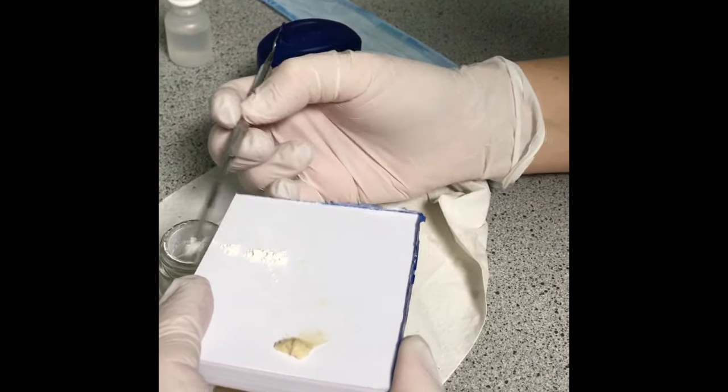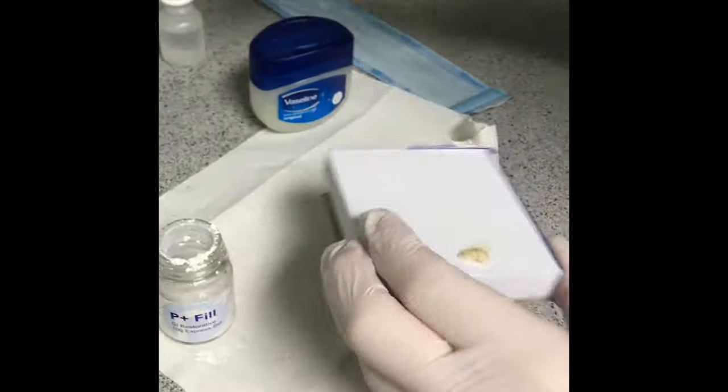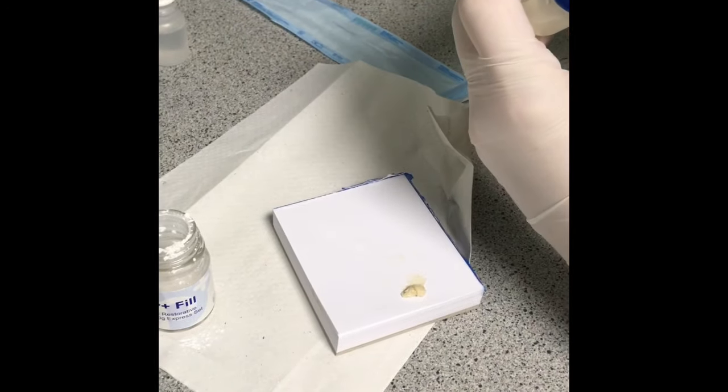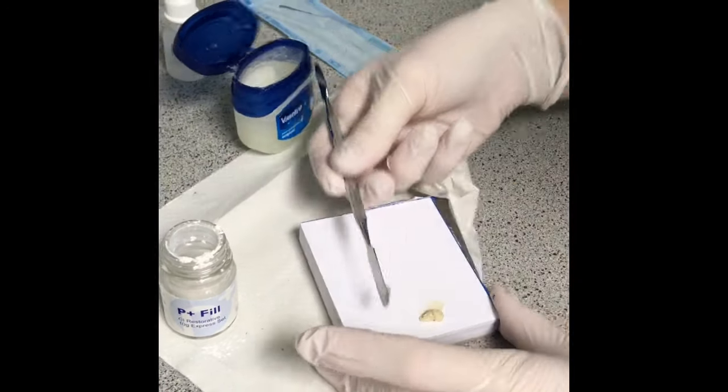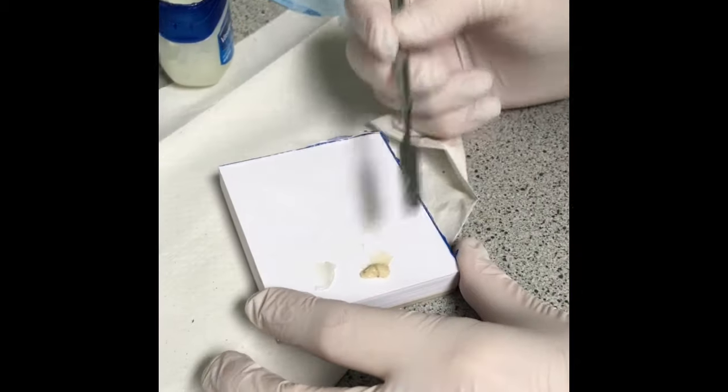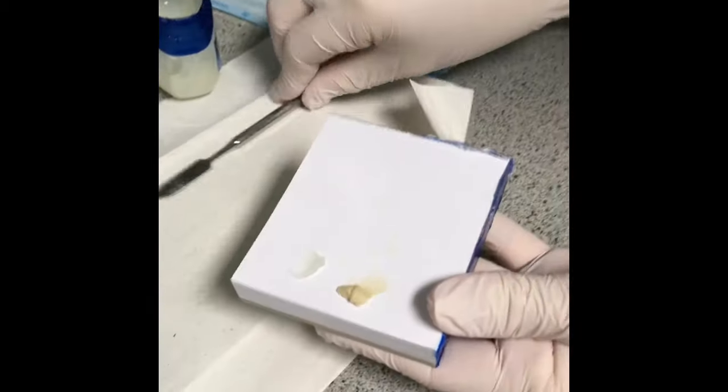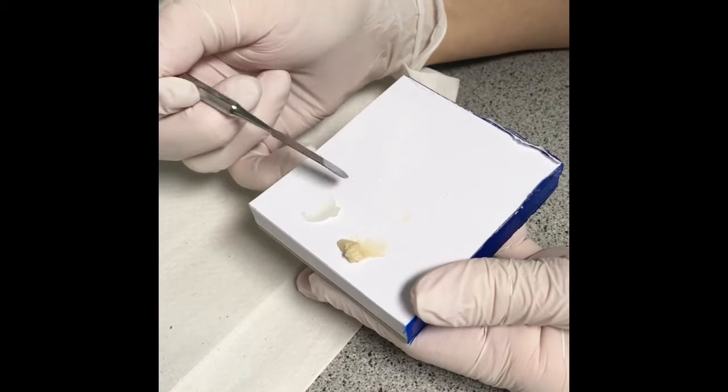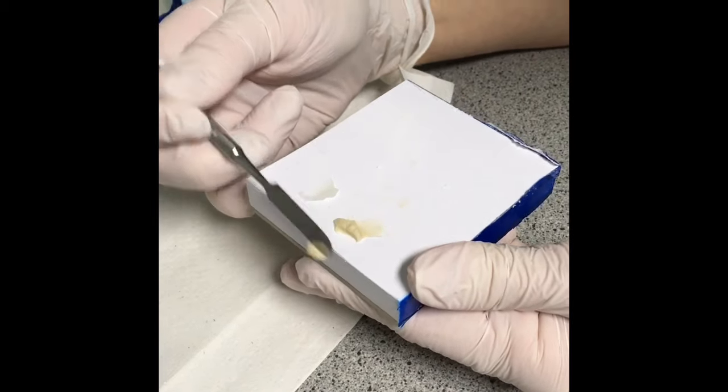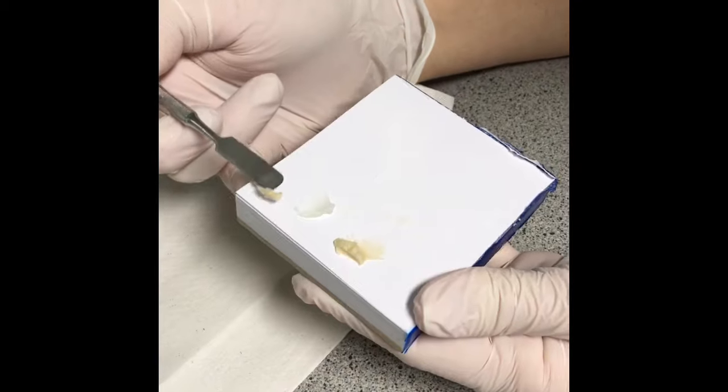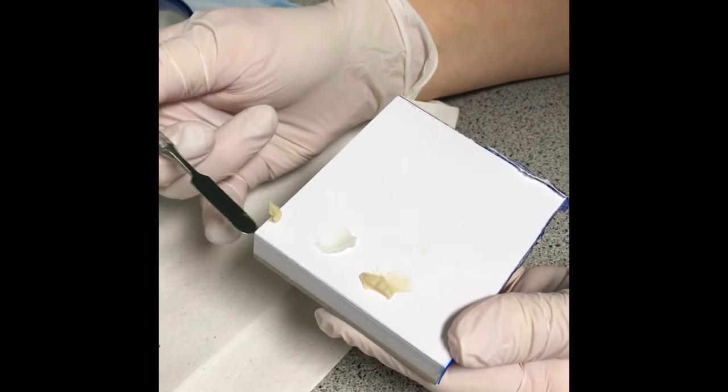the jar with the flat end. Then I always get a tiny bit of Vaseline as well and put that on, because this feels slightly gritty in the patient's mouth. The dentist sometimes will use the glass ionomer and then smear the Vaseline over the side as well. So that's the correct consistency for a filling for a child.